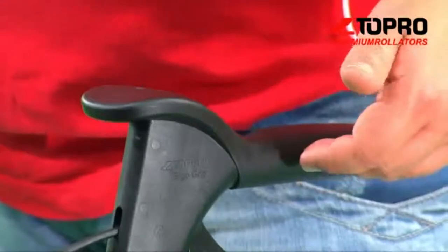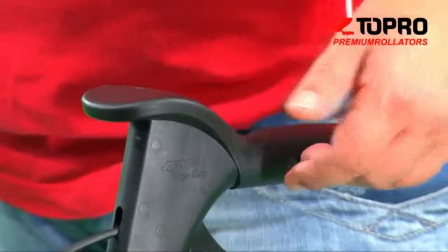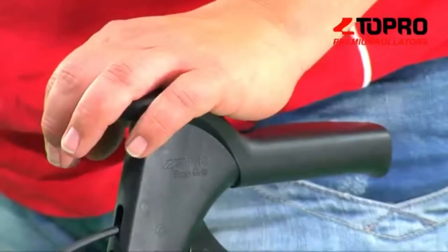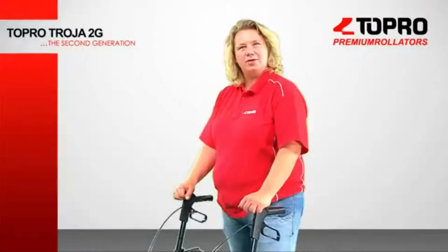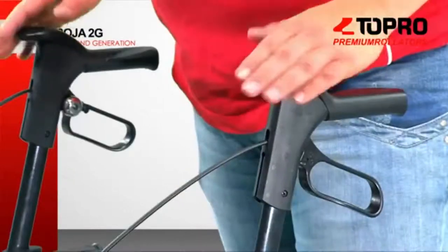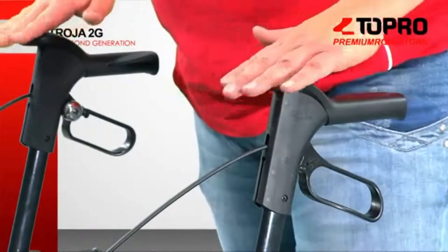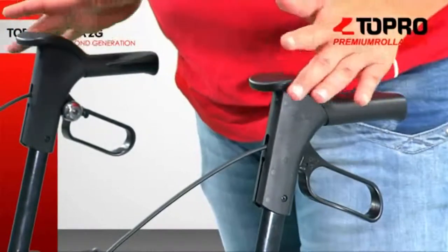The Topro ergo grip is made of a two-component plastic part. The inner part is made of nylon with glass fiber — we chose this material because of its strength. The outer part is made of biocompatible thermoplastic rubber. During our R&D process, we tested different designs and this design is the best among our test panels. It has good friction, soft touch, and no hard lines.